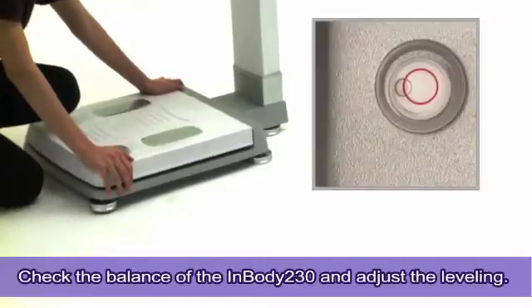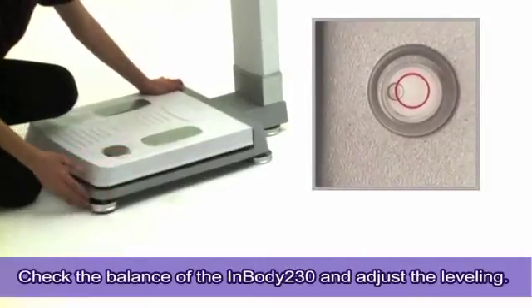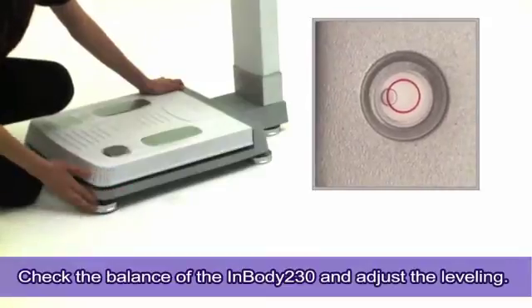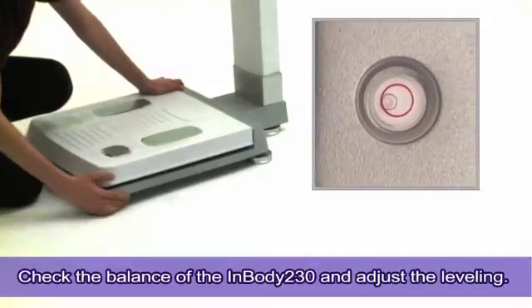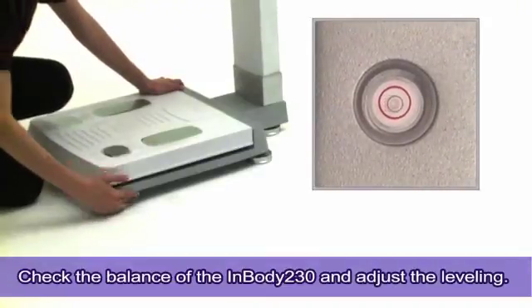Check the balance of the InBody with the built-in bubble level located in the top left of the footplate. To adjust the leveling, twist the foot supporters to lower or raise each corner of the base.